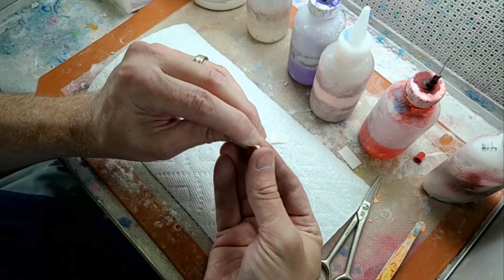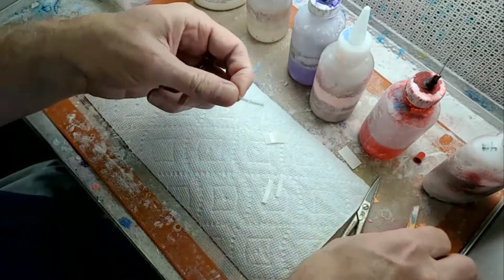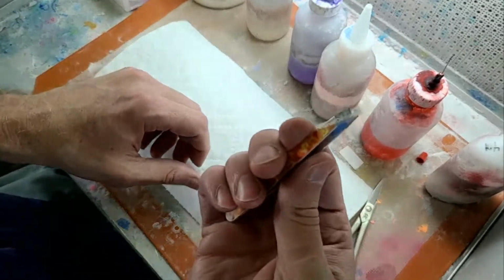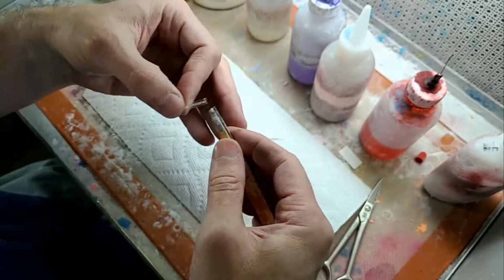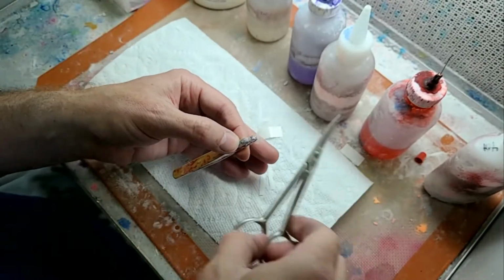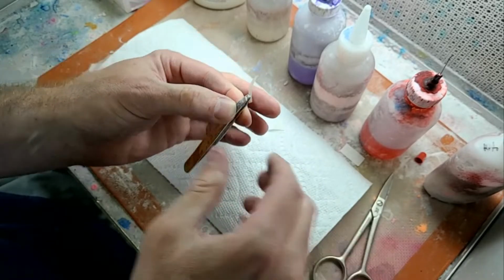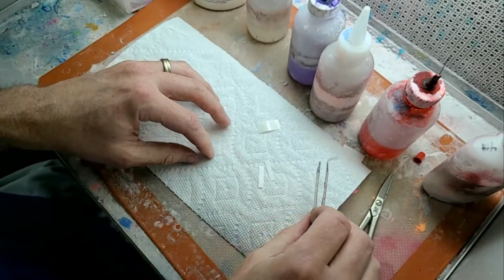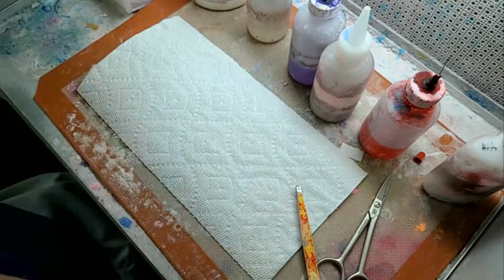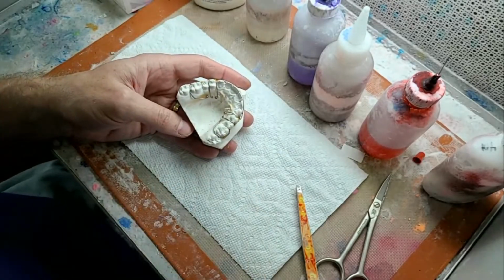So in the state of Texas, we do have to put the names in these retainers. So I'm used to doing this. What my wife does is she'll print all the names up while she's checking them in. And she's got one of these P-Touch labelers that's connected to the computer. So she can print a dozen of these names at a time, cut them all out, and then she sticks them to the case pan. But all right, let's go into sprinkling this.